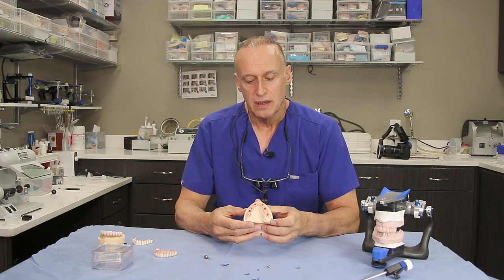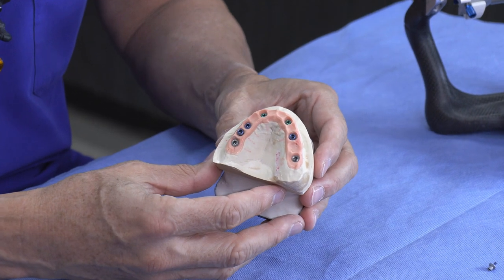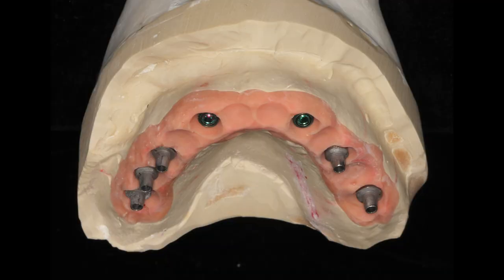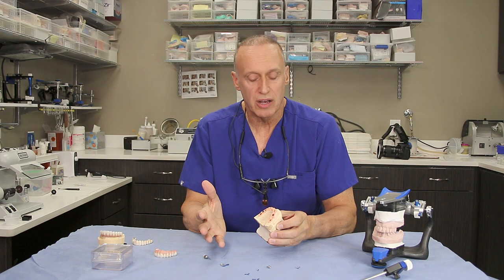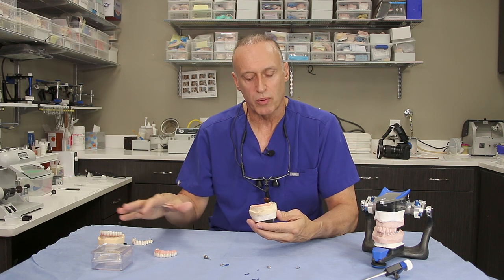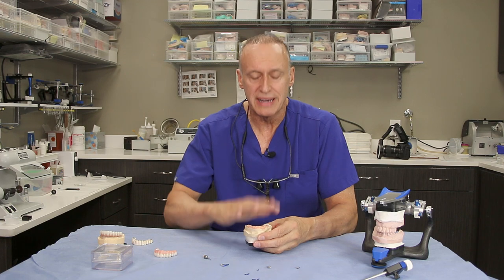Once the implants are healed and the soft tissues are mature, we go ahead and do a final impression in the mouth on the implants using a very specific technique. This is a master cast. This master cast started out with the impression in the patient's mouth. We also do a verification — this master cast has to be perfect, mimicking what's in the mouth as closely as possible. We ask the lab to be very delicate with it because any changes in the master cast will impose errors in the final prosthesis. This is the basis or the foundation that we work from.